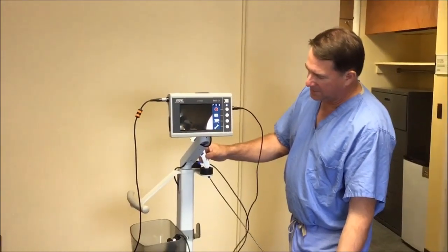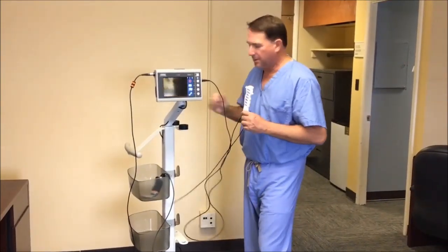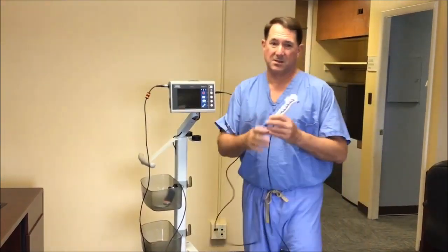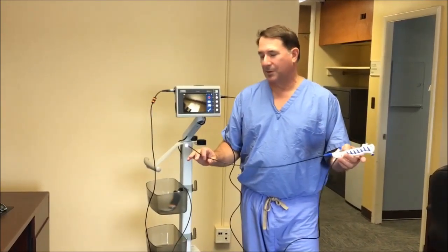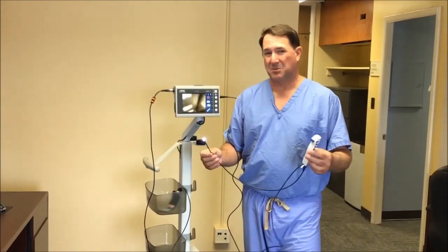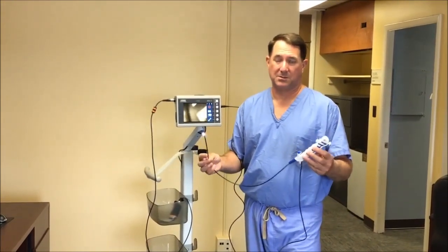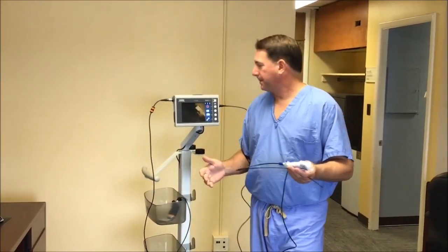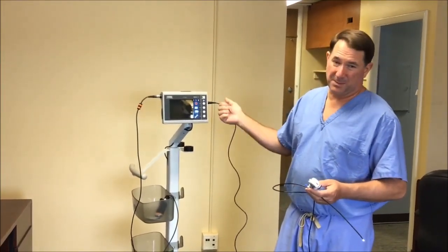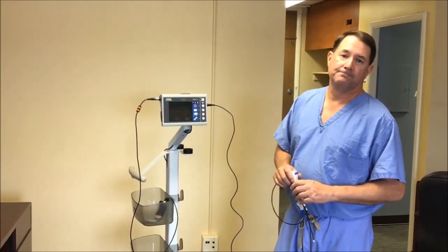The cart has a holder where you can set and route the scope through. There's a little plastic disposable carrier I'm going to have mounted on here for you — that's what those two holders on the back are for. This scope is single-use and disposable. I hope to have them in by mid-October 2020. They'll be in the service center — just ask for a disposable flexible Storz scope. For troubleshooting: make sure it's plugged in and powered on. If you don't have an image, hit the toggle button, give it a second, and it ought to come right up.